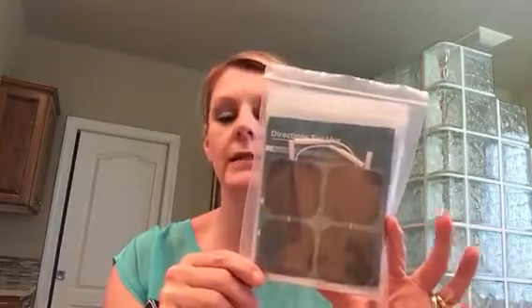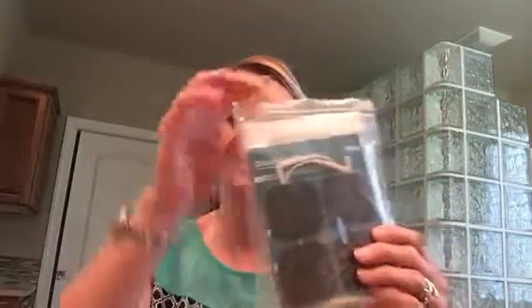Hey guys, it's Robin again. I just wanted to show you these easy at-home self-adhesive reusable electrodes for the pain relief device that they sell. Obviously if you're looking at these you have the device already, so I just kind of wanted to do a basic unpackaging video and show you exactly what you get in the bag.